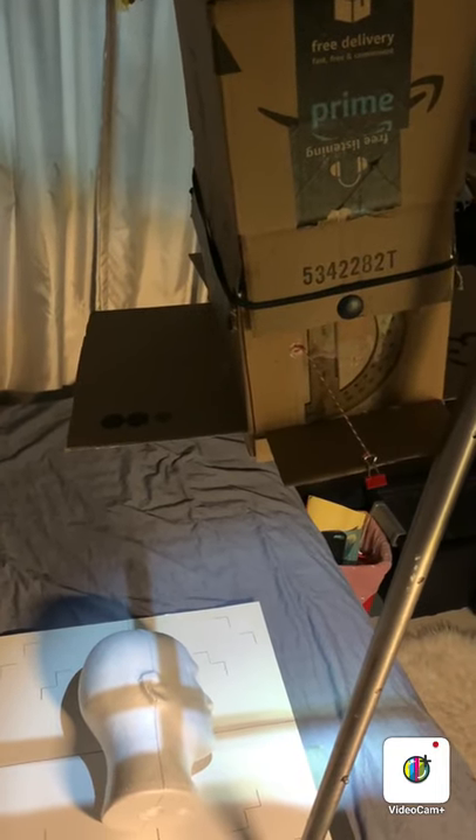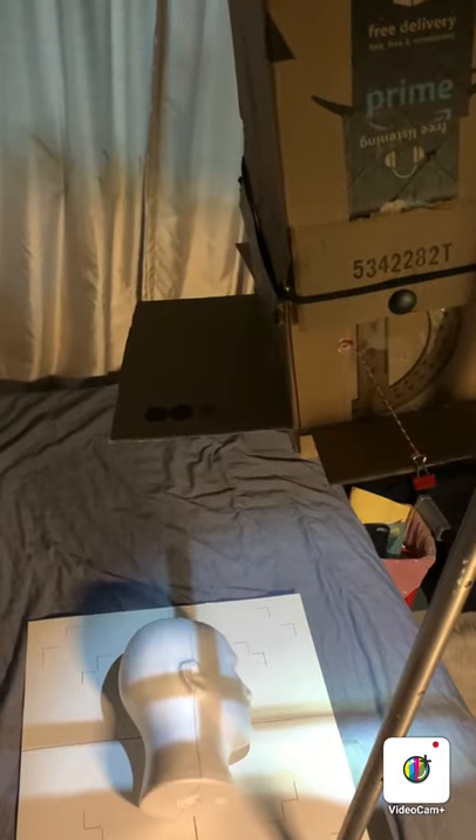With the same setup, I can do tabletop to do skull work, and I can still show an angle. Just be mindful of your SID — this is about 40 inches. I do have a way of tilting the tube to measure angles, and that is the use of the second compass.